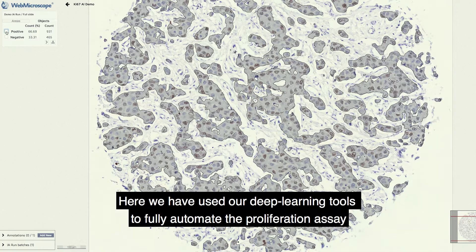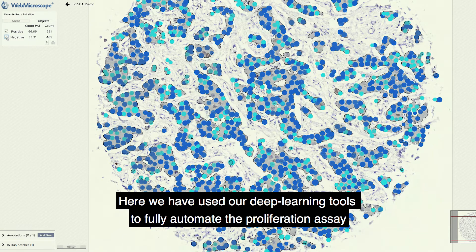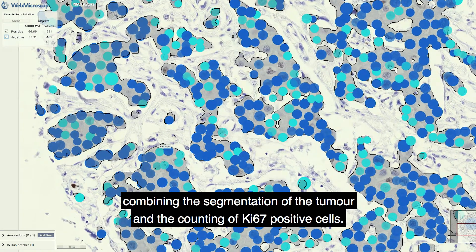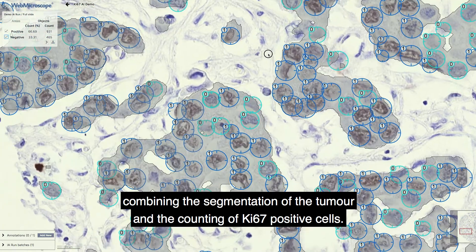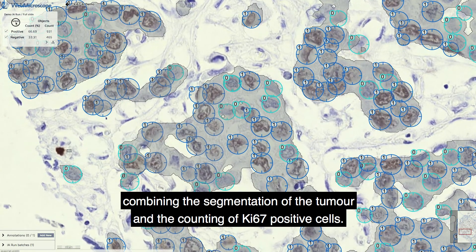Here we have used our deep learning tools to fully automate the proliferation assay, combining the segmentation of the tumor and the counting of Ki67-positive cells.